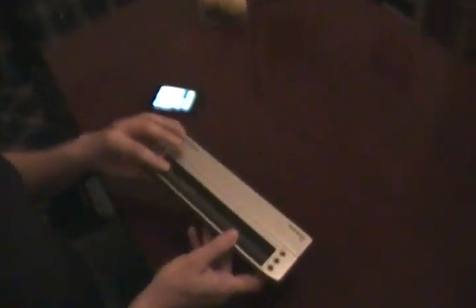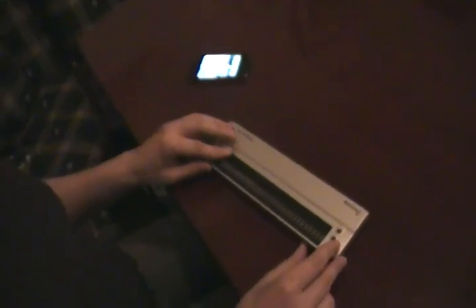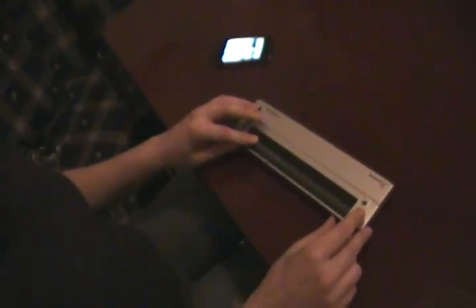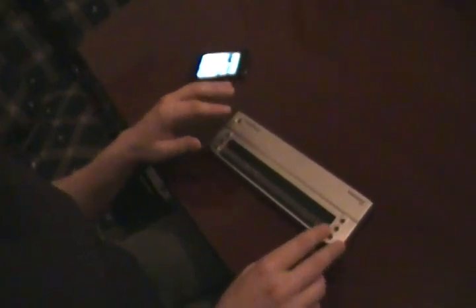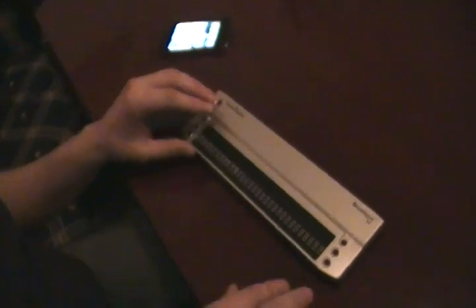Braille display — well, first of all, Braille is the alphabet that's used by blind people to read printed text. It looks like a bunch of dots, and you would print something up and these dots would shape letters. A refreshable Braille display, in this case, is a device like this.